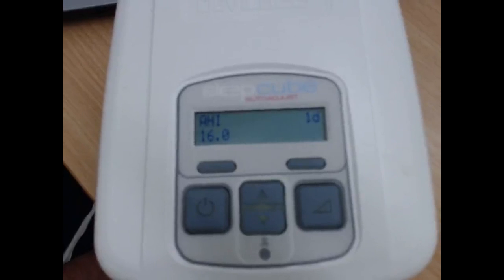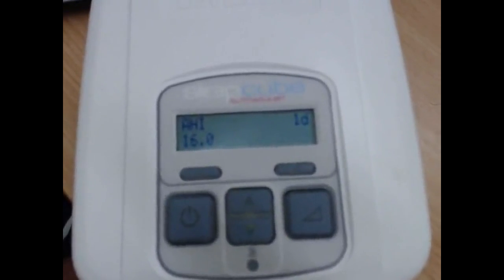So I'll give you an example. It's always good to have an example. If our P90 value was 10, we know that 90% of the night the automatic machine is running below 10. It basically tells us a great place to start when we're going to fix a CPAP pressure.